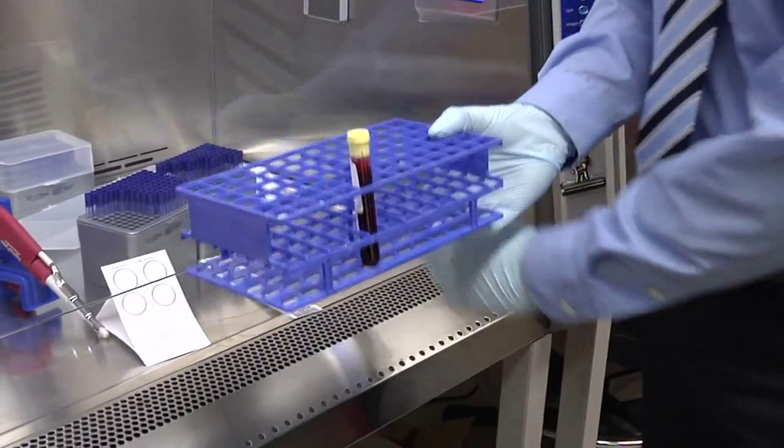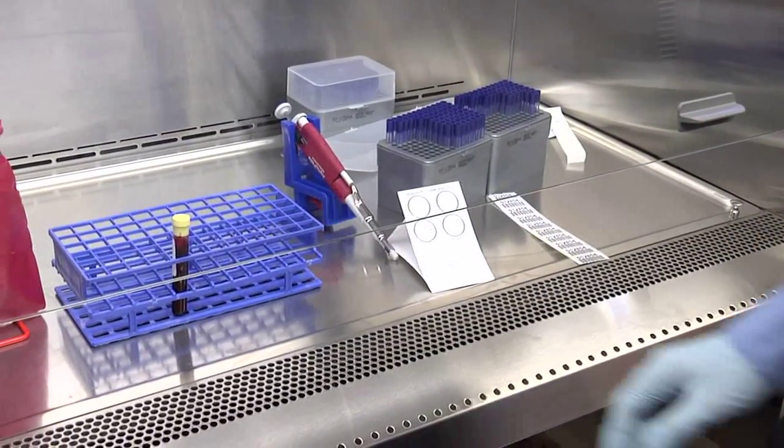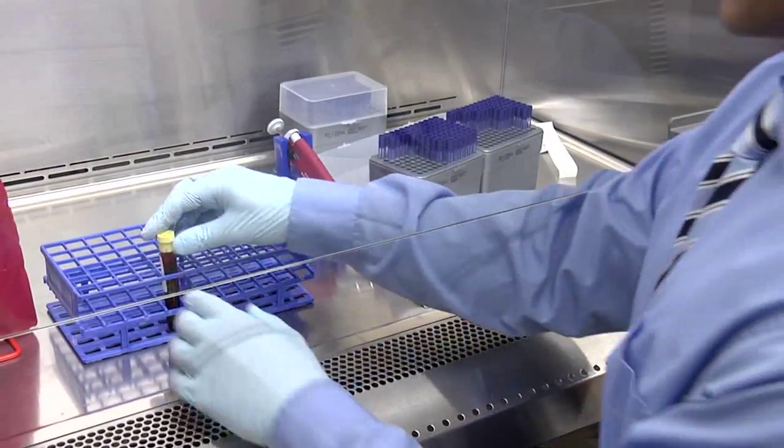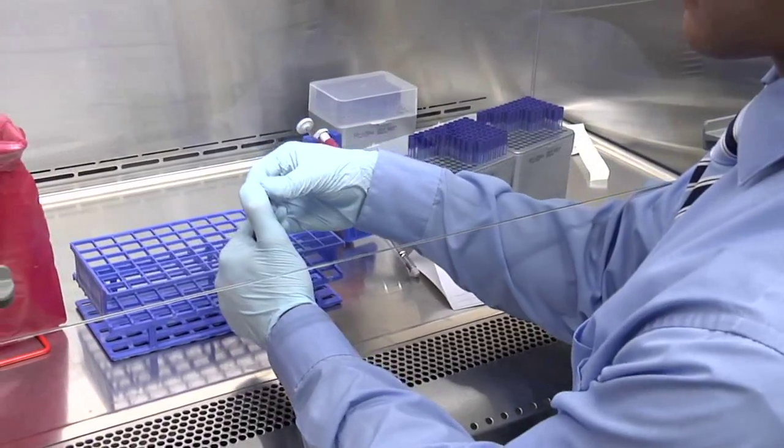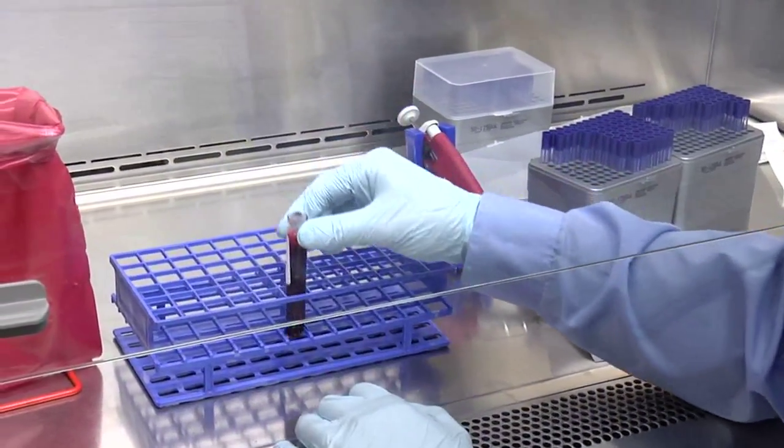Making a blood spot card. Place the sample under the hood, ease off the cap, and place the sample back in the rack.